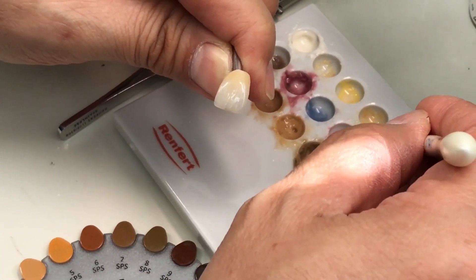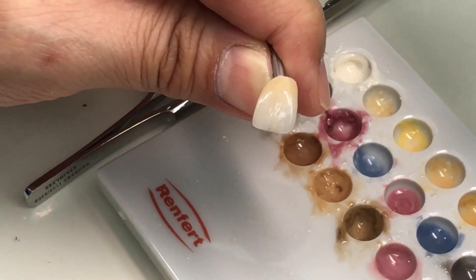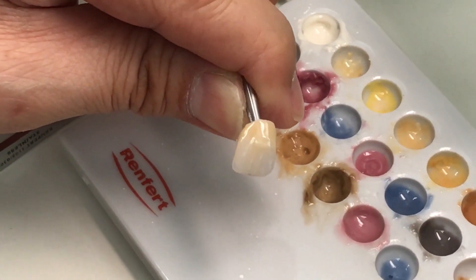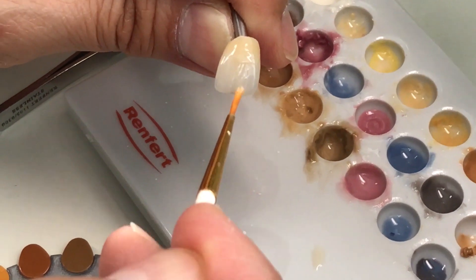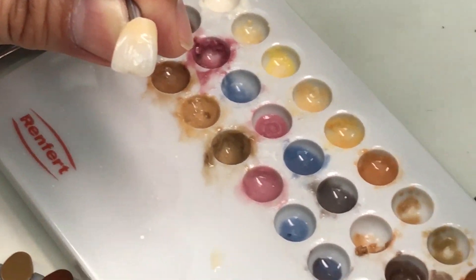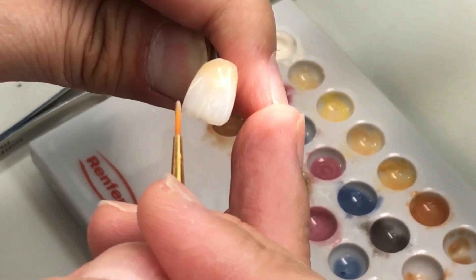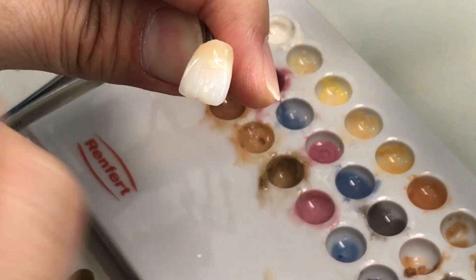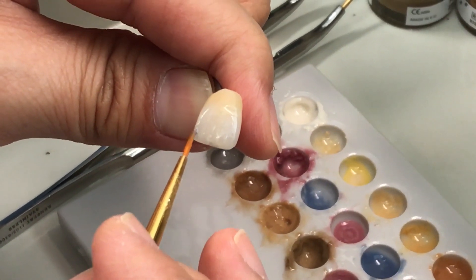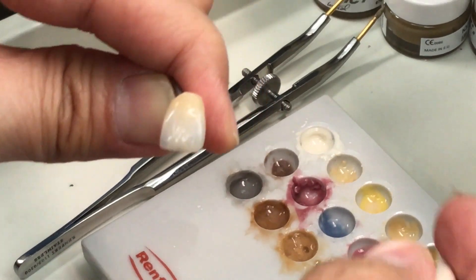I use the spectrum color, which is SP2, like that. I can put it in between the teeth — not only that, I also apply it between 13 and 12 here, to create a little bit like this. Can you see?